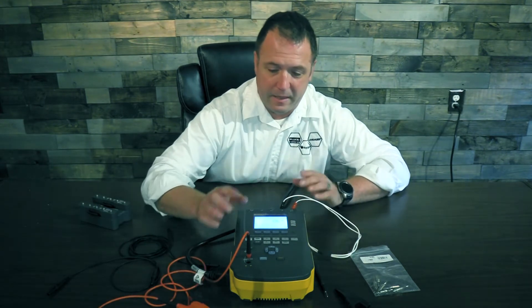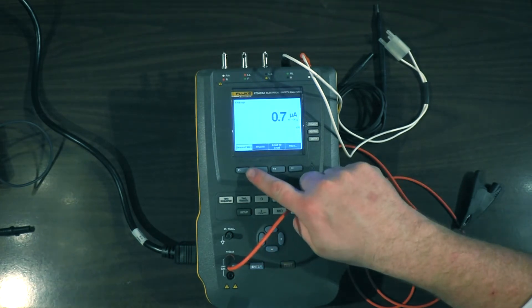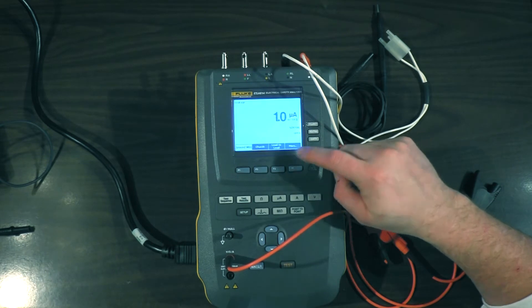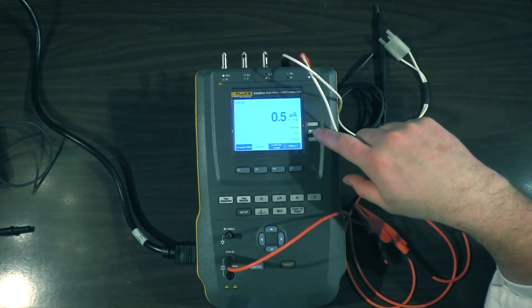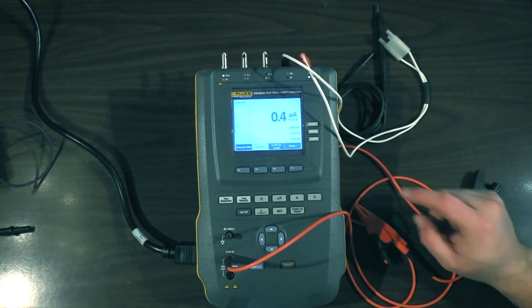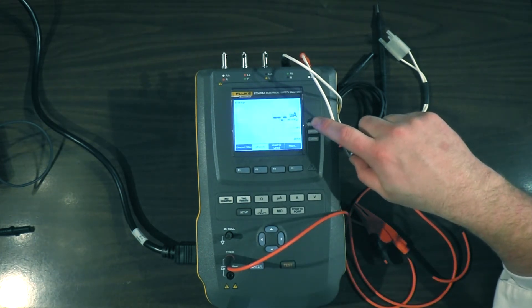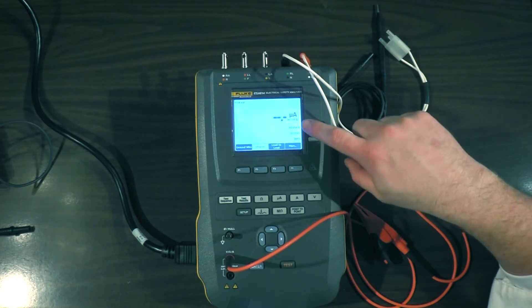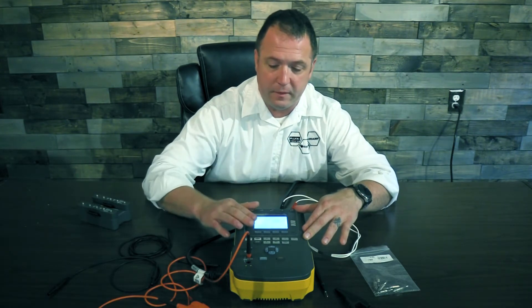That gives us our ground wire resistance — that simple. We can go over here to leakage and do our ground wire leakage: normal polarity, single fault condition — easy enough. We can do our chassis leakage if you need it — normal condition, close the neutral. You can raise the earth for single fault, and for reverse polarity, push the polarity button, take it to off, then reverse polarity for reverse polarity testing.